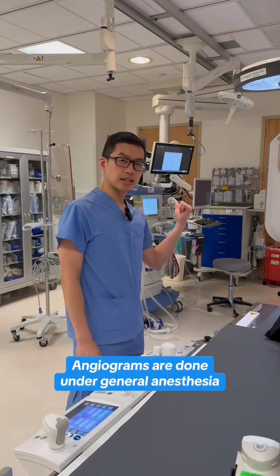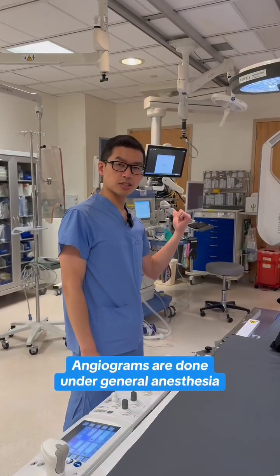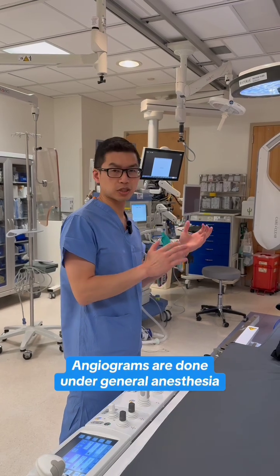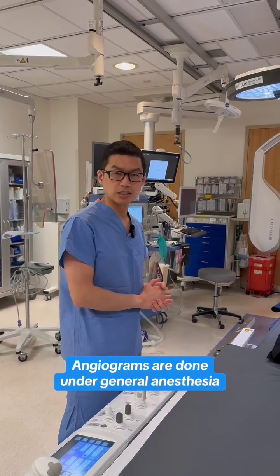So behind me, this is the anesthesiologist's workstation. They make sure you're comfortable and safe throughout the procedure while we're working on the imaging.